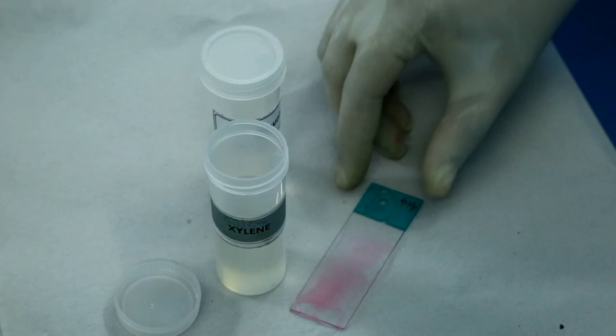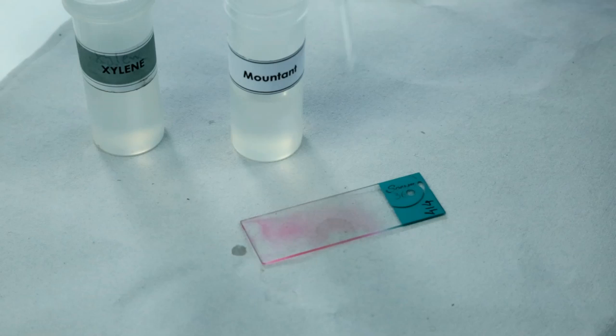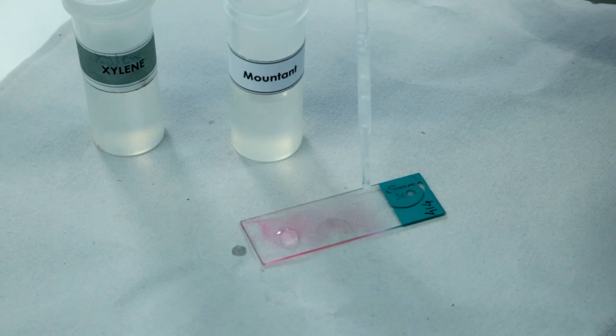Take the stained slide and dip it into xylene. Take the slide out. Place the mounting medium on the slide. Place a coverslip on the slide, avoiding air bubbles, and keep it for 10 minutes.